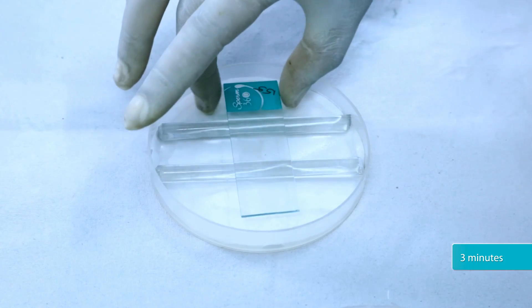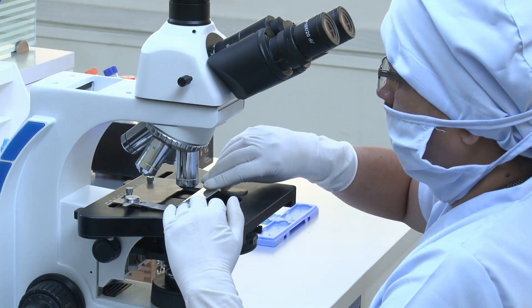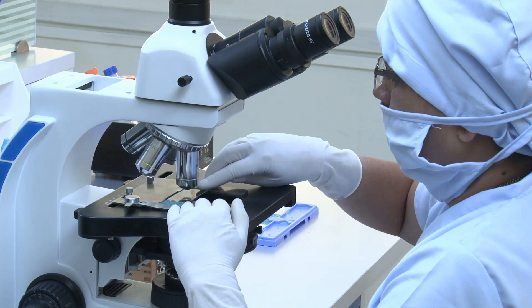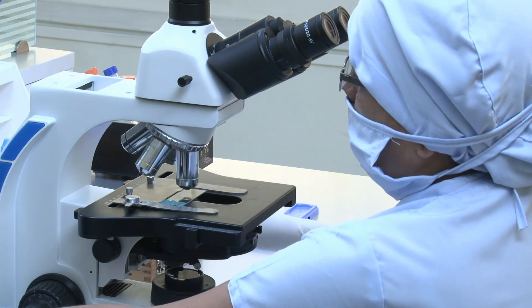After 3 minutes, observe the smear under phase contrast microscope using 40x objective lens.